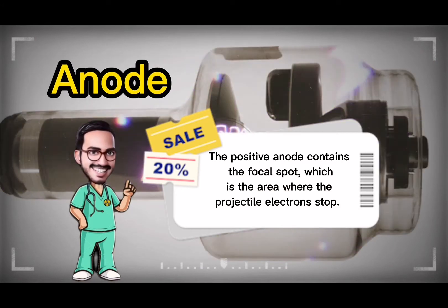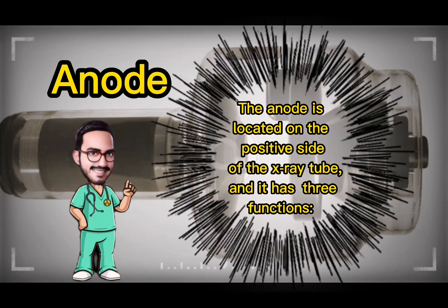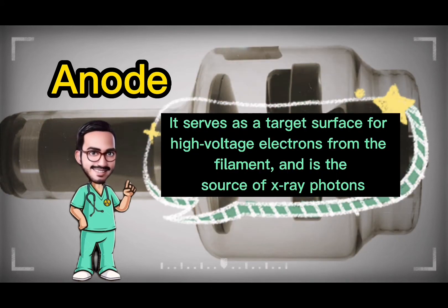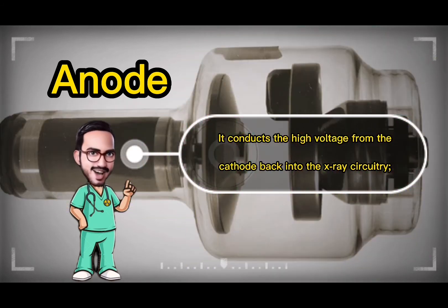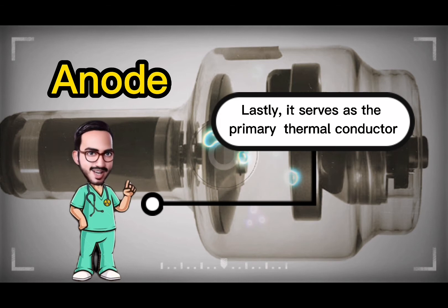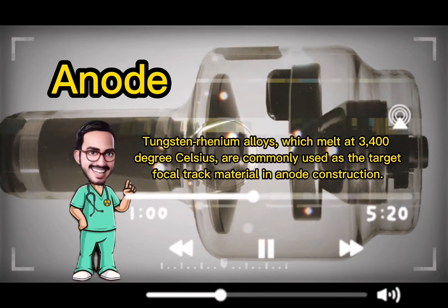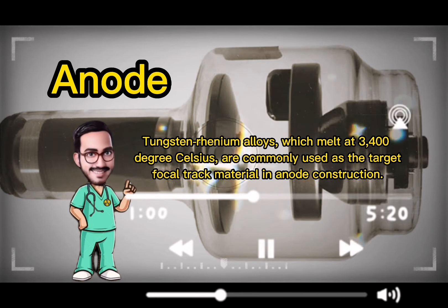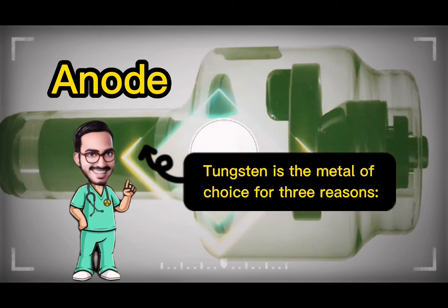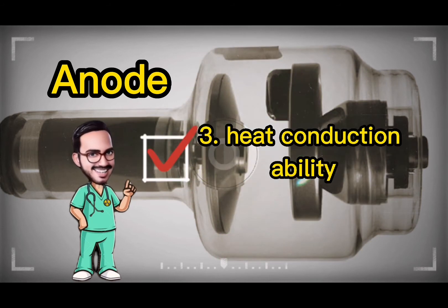The positive anode contains the focal spot, which is the area where the projectile electrons stop. The anode has three functions: first, it serves as a target surface for high voltage electrons from the filament and is the source of x-ray photons; second, it conducts the high voltage from the cathode back into the x-ray circuitry; and lastly, it serves as the primary thermal conductor. The anode must be made of material with a high melting point. Tungsten-rhenium alloys, which melt at 3,400 degrees Celsius, are commonly used as the target focal track material. Tungsten is the metal of choice for three reasons: high atomic number, high melting point, and heat conduction ability.